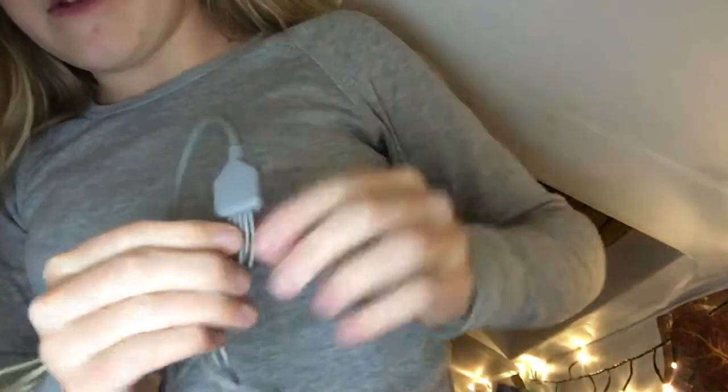So I'm going to give you a tour of this because I can. It goes under my shirt and there's five different cables that lead to five different colored sockets. First color is white, second color is blue, third color is brown, fourth color is yellow, fifth color is orange.